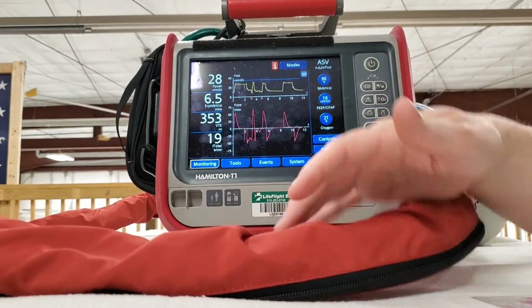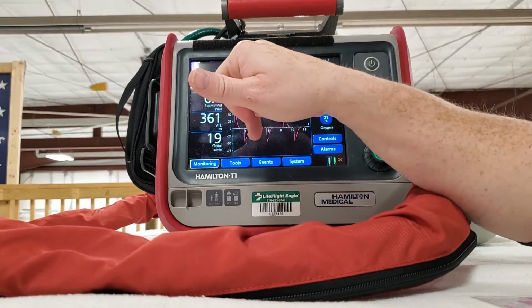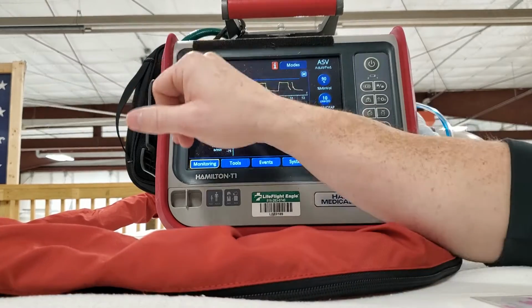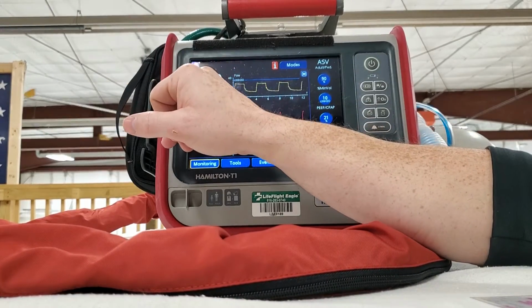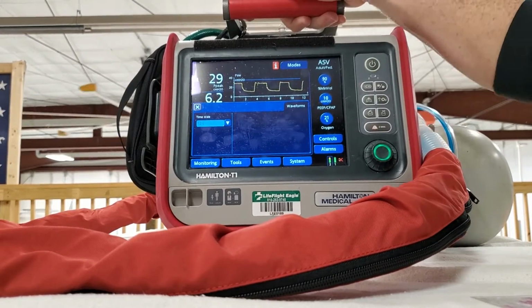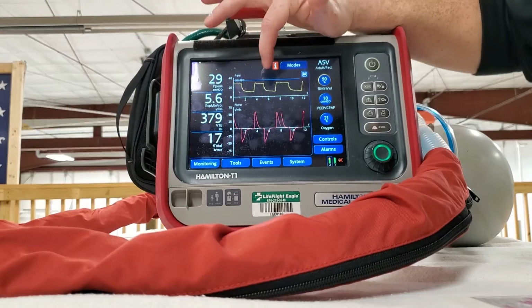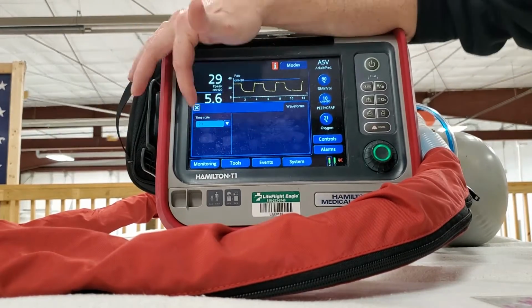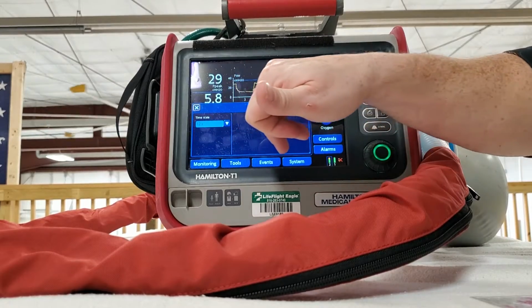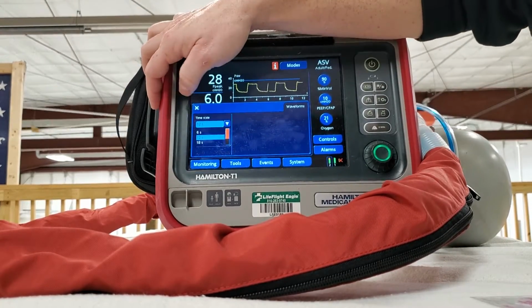So the next thing we'll talk about, we talked about the alarms, we talked about the controls and making changes, we talked about getting your P-plat measurement, but again, they're almost always going to be close to that. If you click on your screen, it gives you a little information too. On your flow chart here, this window is 12 seconds, and it's got numbers down here to help you see it.